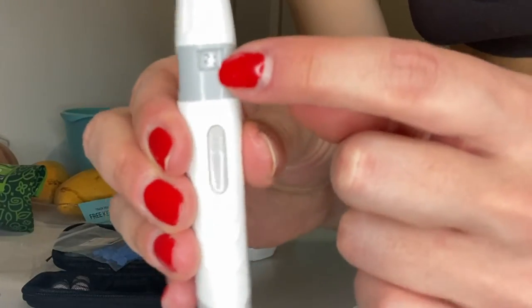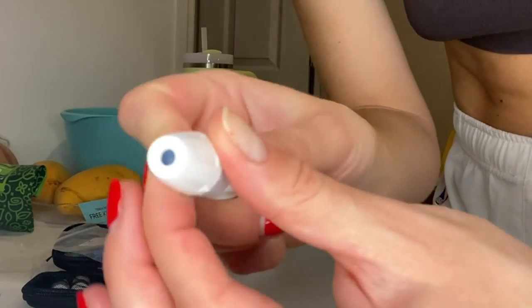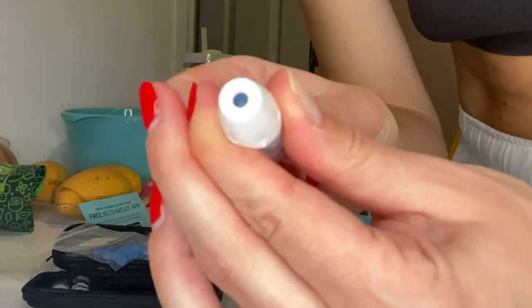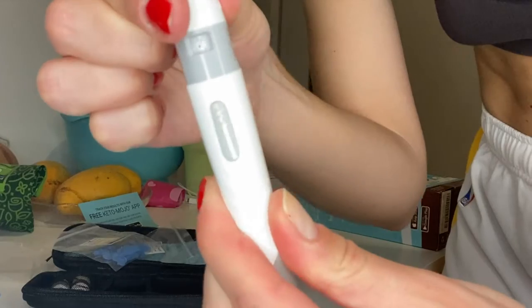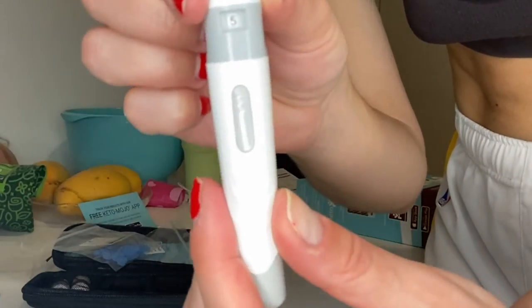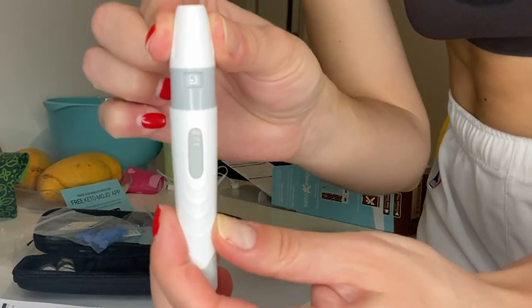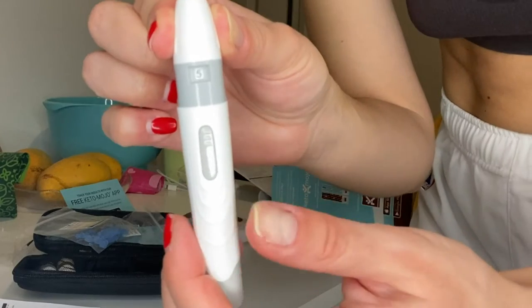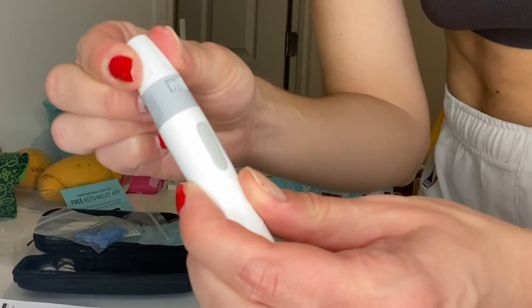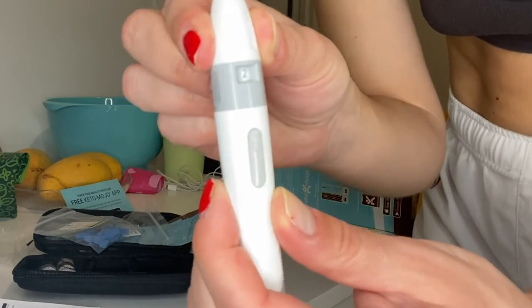Right here there are numbers indicating how intense it's going to go, and you can adjust it by moving this. I don't even know — I'll just do a five. Actually it's saying five is the highest and it's for people with really thick skin, so it's suggesting you start low. I'm going to maybe start with a two before I go crazy and go straight to five.